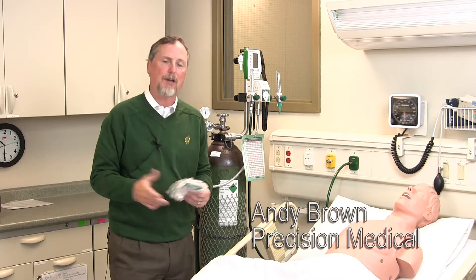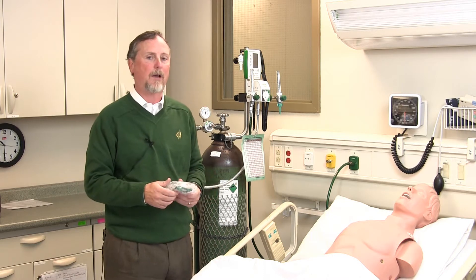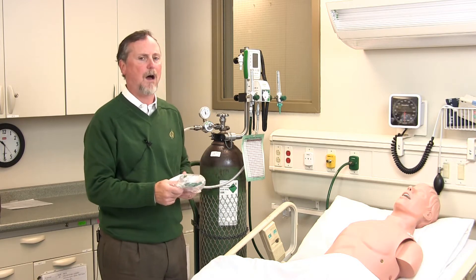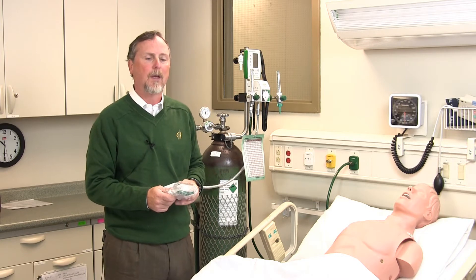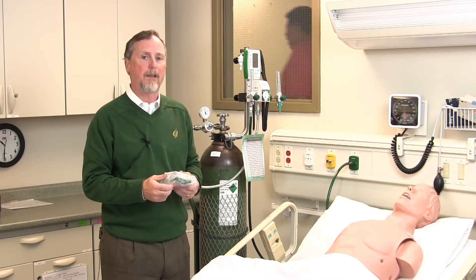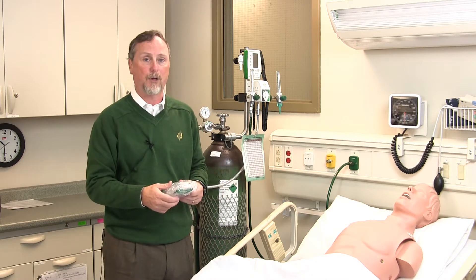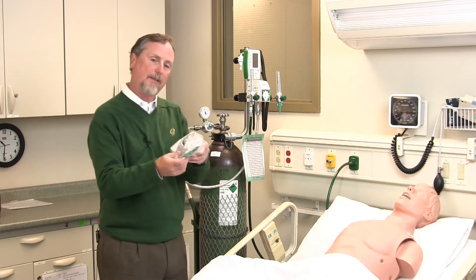Now we're going to talk about initiation of Heliox Therapy. The most common way of doing Heliox Therapy is via a high flow system, to meet the patient's inspiratory demand. In this example, we have a non-rebreather, although there's evidence out there for other devices to be used. We do advocate that you use Heliox on label, so that whatever you hook up to the Heliox Blender is a device that is approved for or has been tested with Heliox.